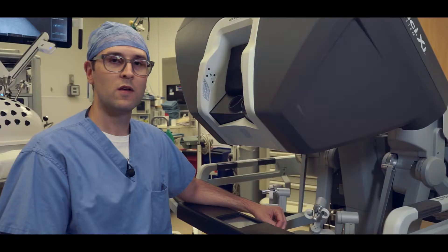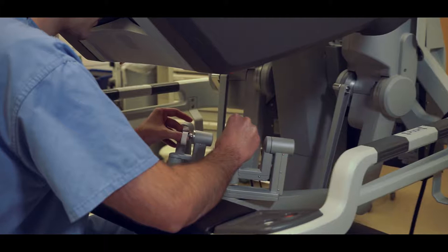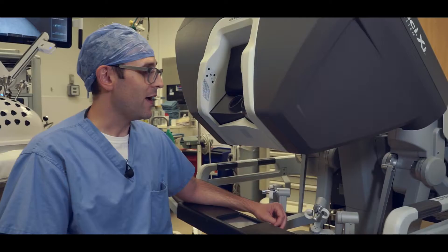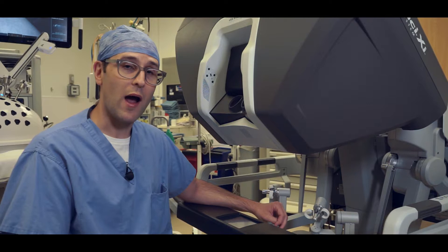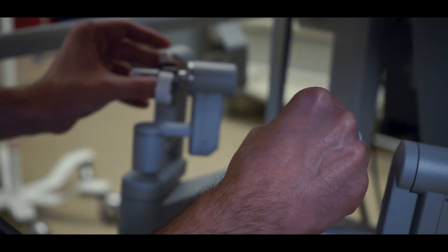So this is the surgeon console. This is where your DaVinci surgeon will sit and control the robot. The surgeon console has a few noteworthy things to point out. The eyepiece has individual lenses for each eye, which allows you to have stereoscopic, three-dimensional vision.